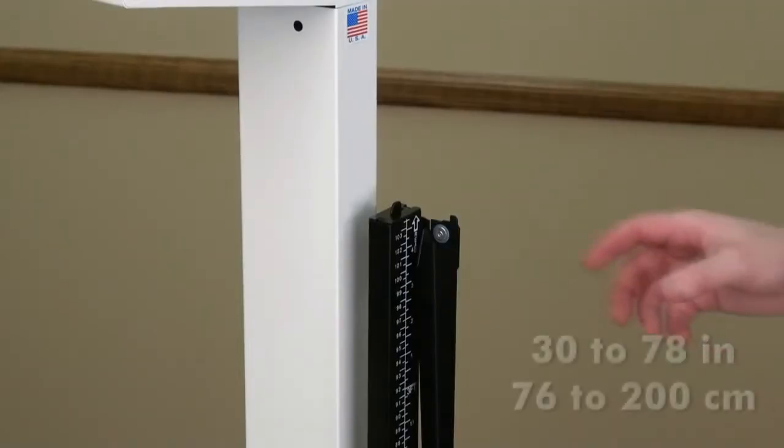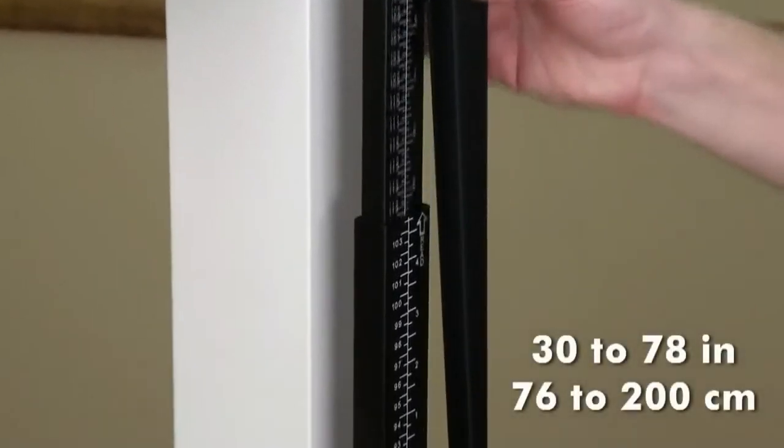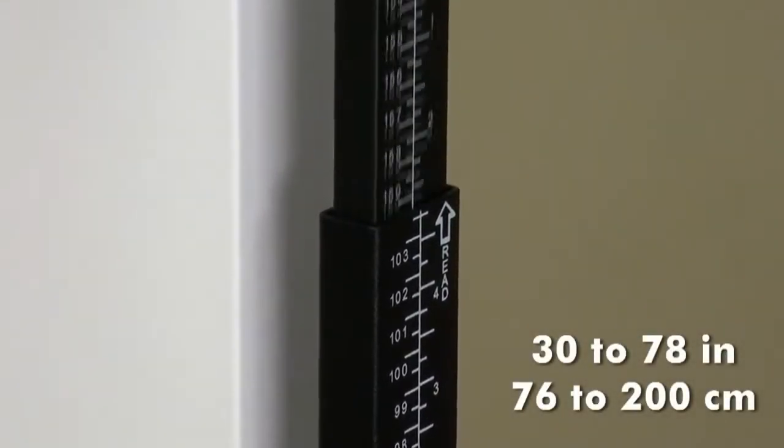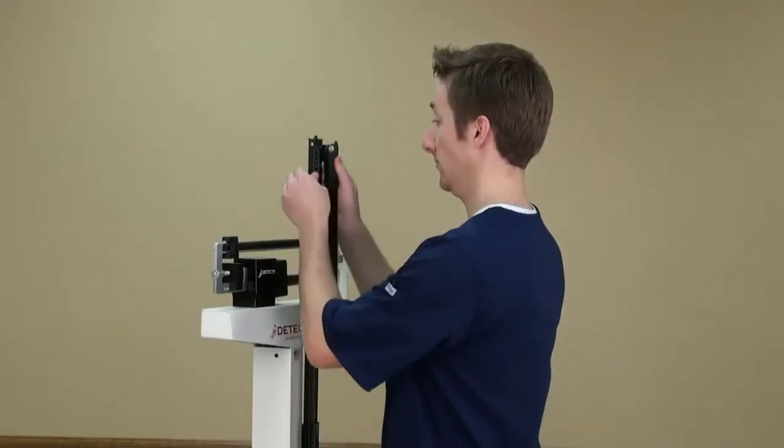The height rod is capable of measurements between 30 to 78 inches and 76 to 200 centimeters, and easily read at a glance.